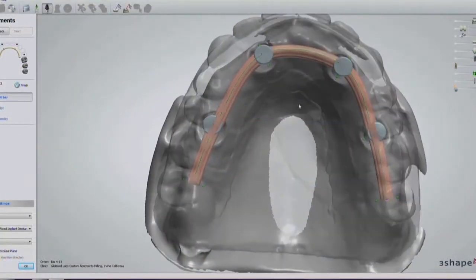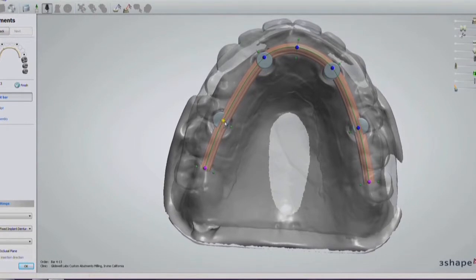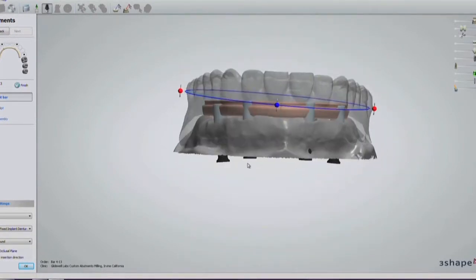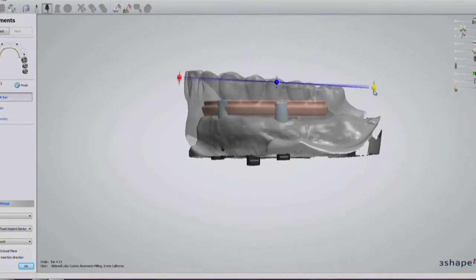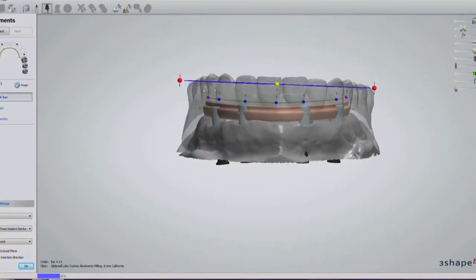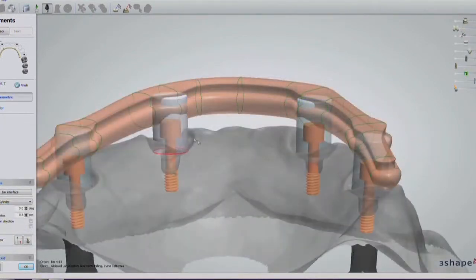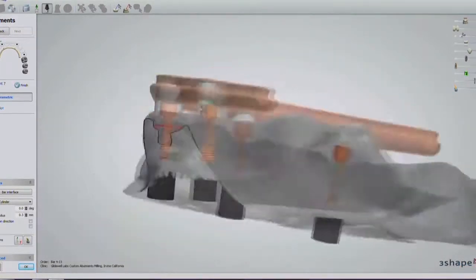A dental technician with CAD expertise designs the bar in a virtual environment using the complete digital rendering of the patient model and denture setup. Designs are either based on one of the standard bar types available in the software library or designed from scratch.